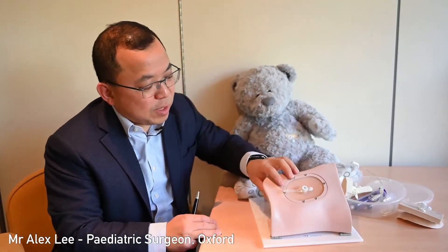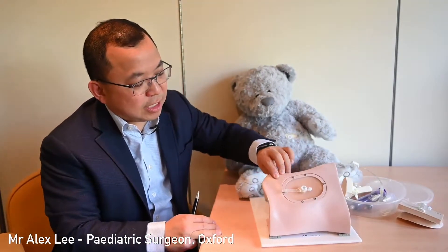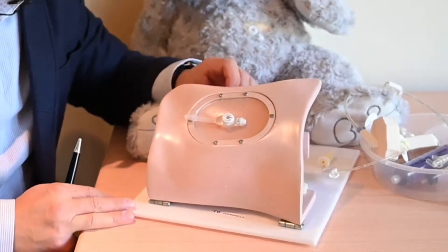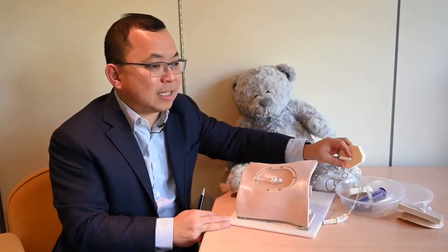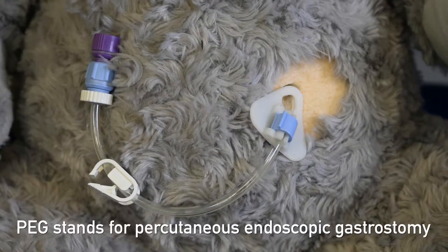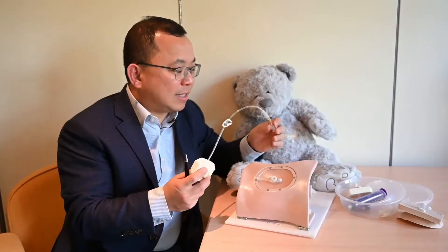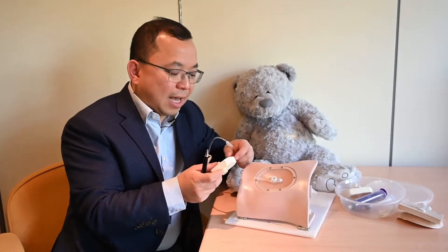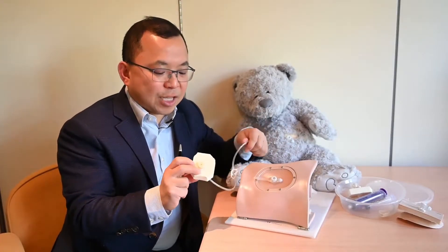Is a gastrostomy button the same as a PEG? PEG is a type of gastrostomy. The gastrostomy I am illustrating here is a gastrostomy button. A PEG stands for a percutaneous endoscopic gastrostomy, which strictly speaking is a different kind of device compared to a button gastrostomy. Usually it's a tube with a flange inside.